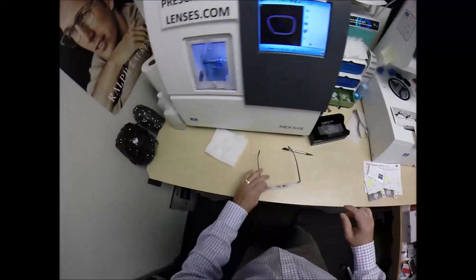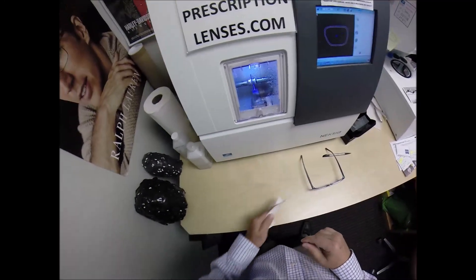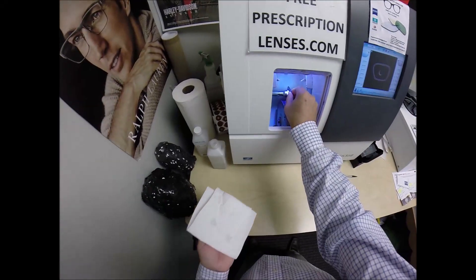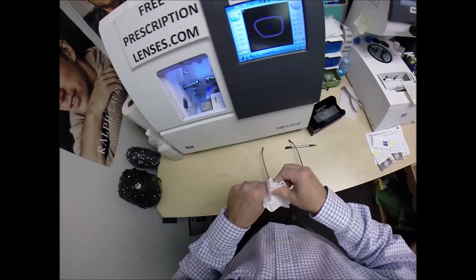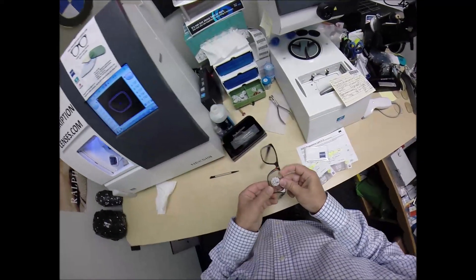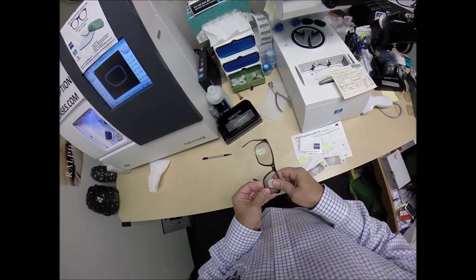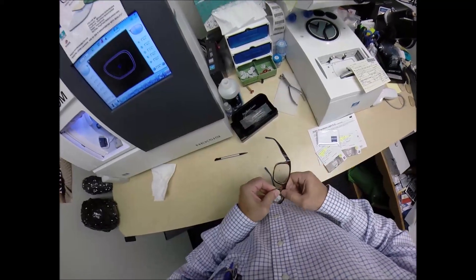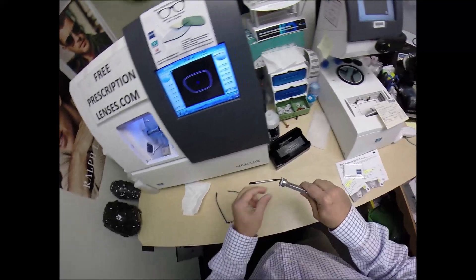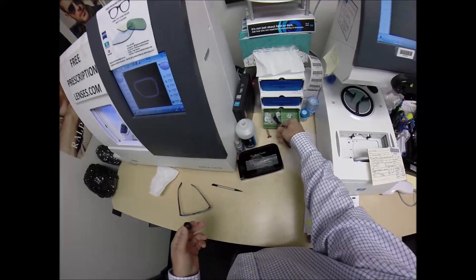Let me grab your frame so I can pop in the left lens. I'm now going to open the door with my mind. I can do other things with my mind. I can melt ice with my mind. I just have to stare at it for a couple hours and then I can melt it. So let's see if the left lens fits first time around. Tuck it in at the outside corner, use my thumbs.